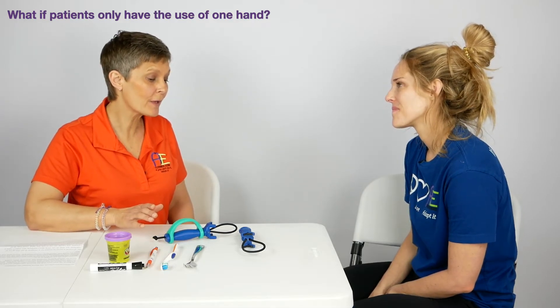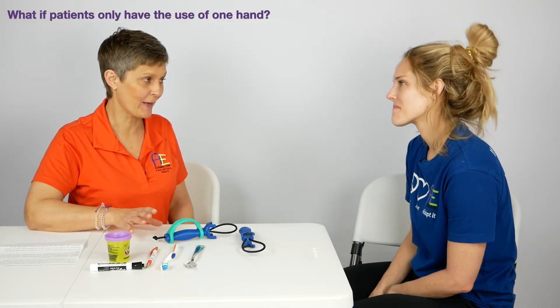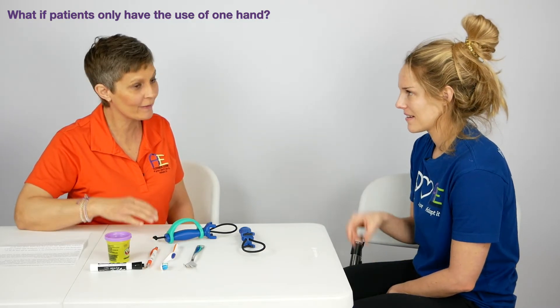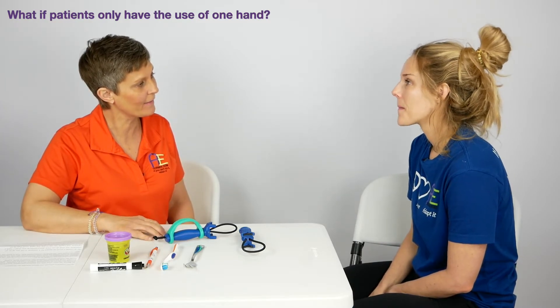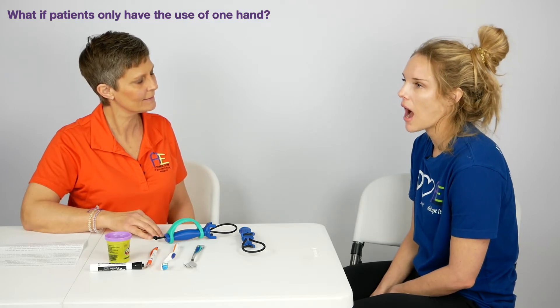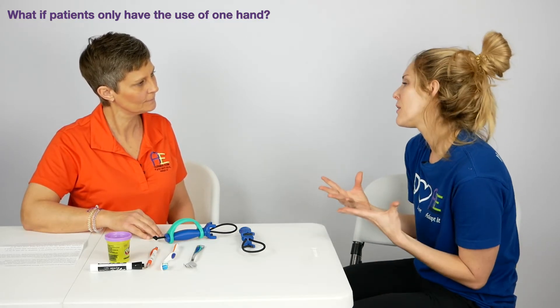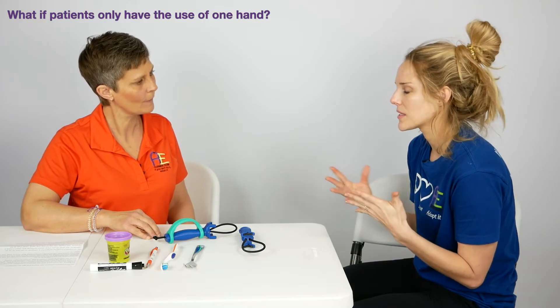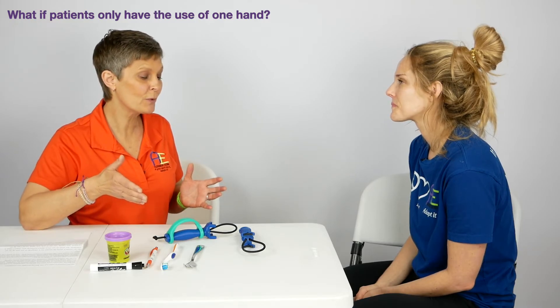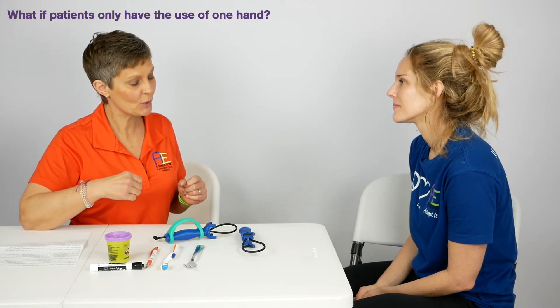Our clients really love to play bingo, and this would be an added bonus for the bingo dabber, especially if you're doing that for a while — it would help with your endurance as far as gripping. Yes, absolutely. The bingo dabber, painting your nails, painting in general — any hobby that is meaningful to any client or person out there. It's just an awesome addition. This would be great for our geriatric population, both for fun activities as well as functional activities.